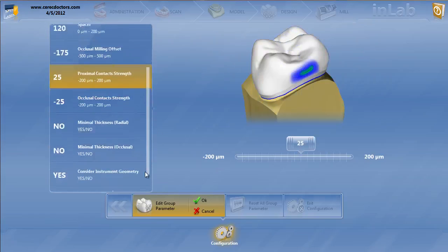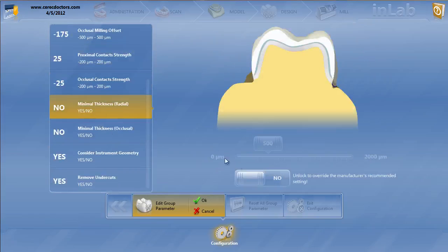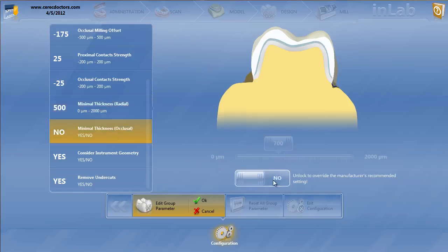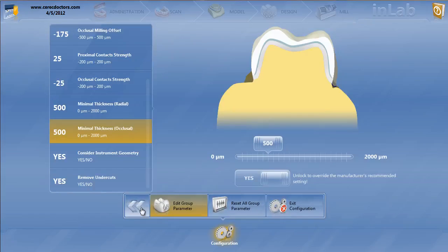Now, these are very important, these minimal thicknesses. You're going to want to set the minimal thicknesses for both the radial at 500 and the occlusion. I actually bring this to 500 as well. You just want these things to get good proposals with these multi-layers. You want the minimal thicknesses pretty low. Now, if you want to change that after you get the proposal, it's certainly your choice. So that is for the crown veneering structure.